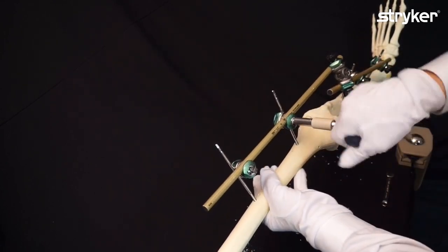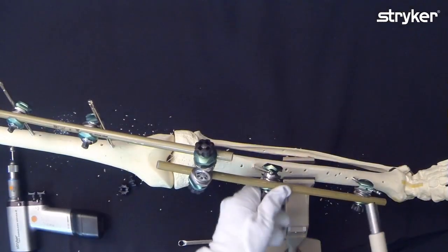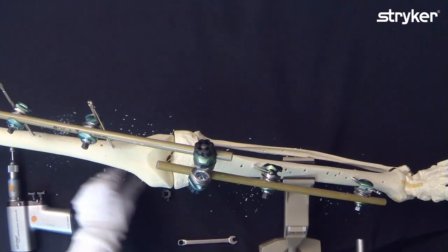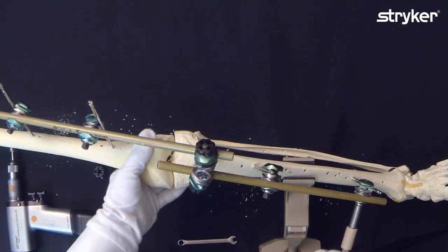Again, the thumbwheels tell us and help us as an indicator for final tightening to show which ones we have not finally tightened.